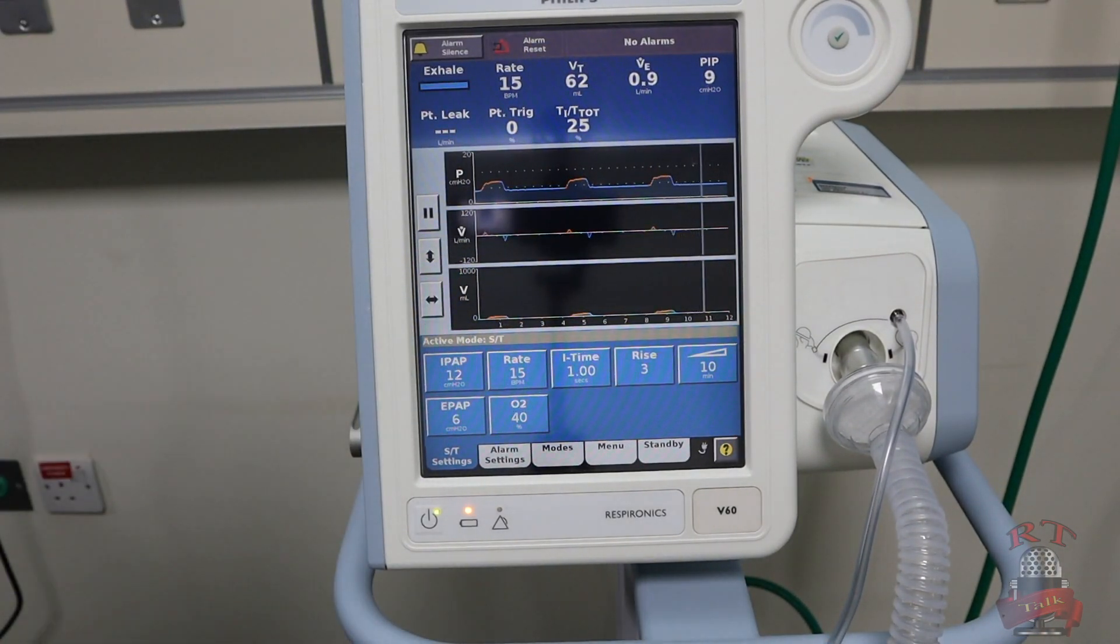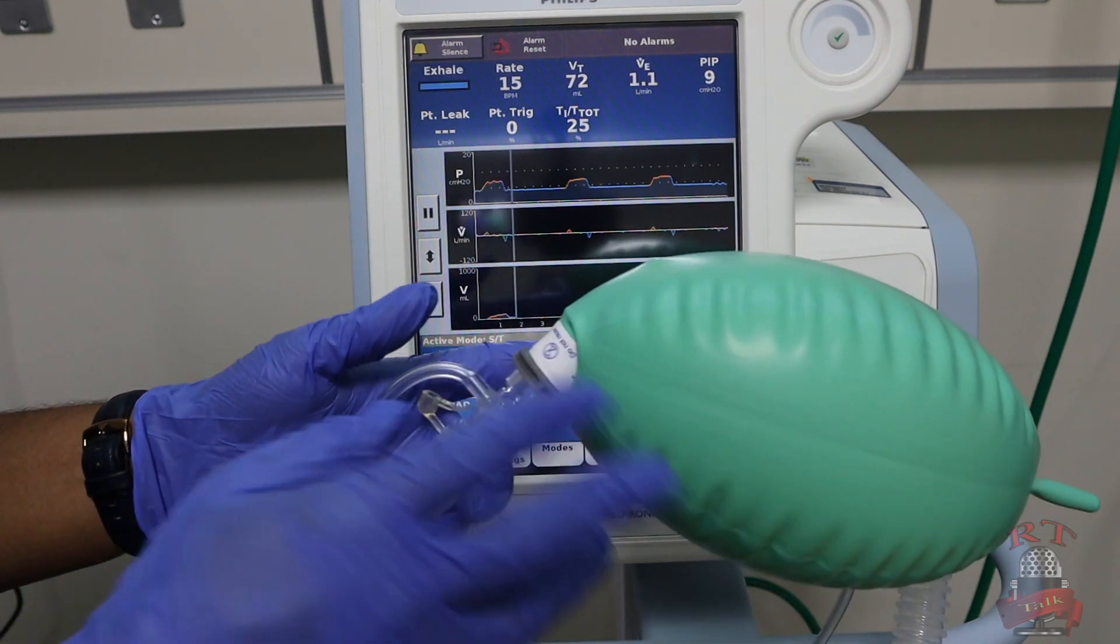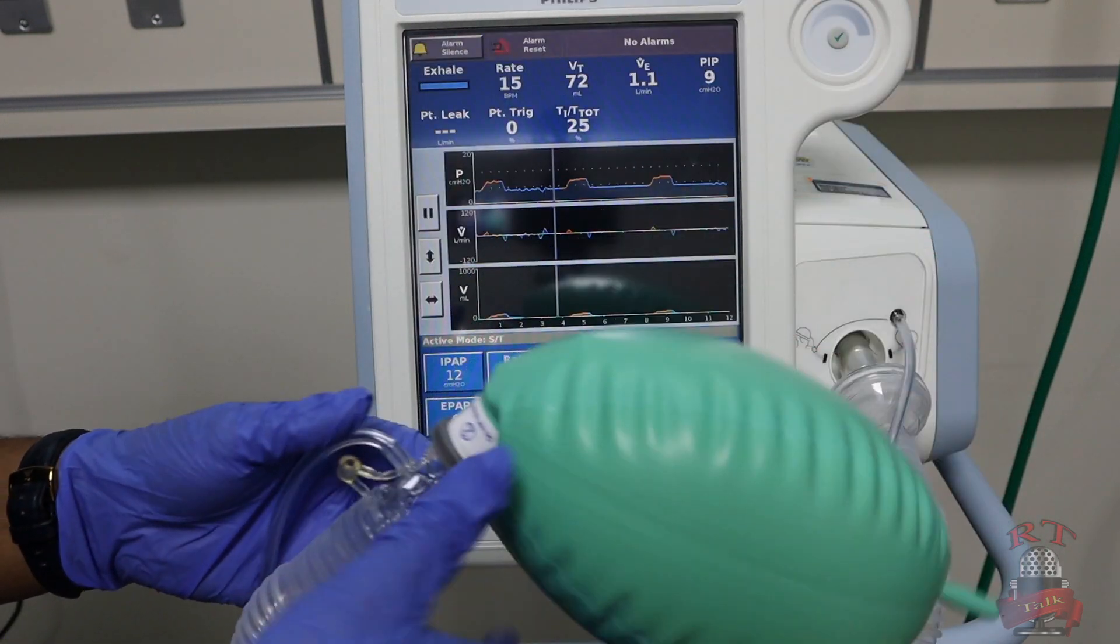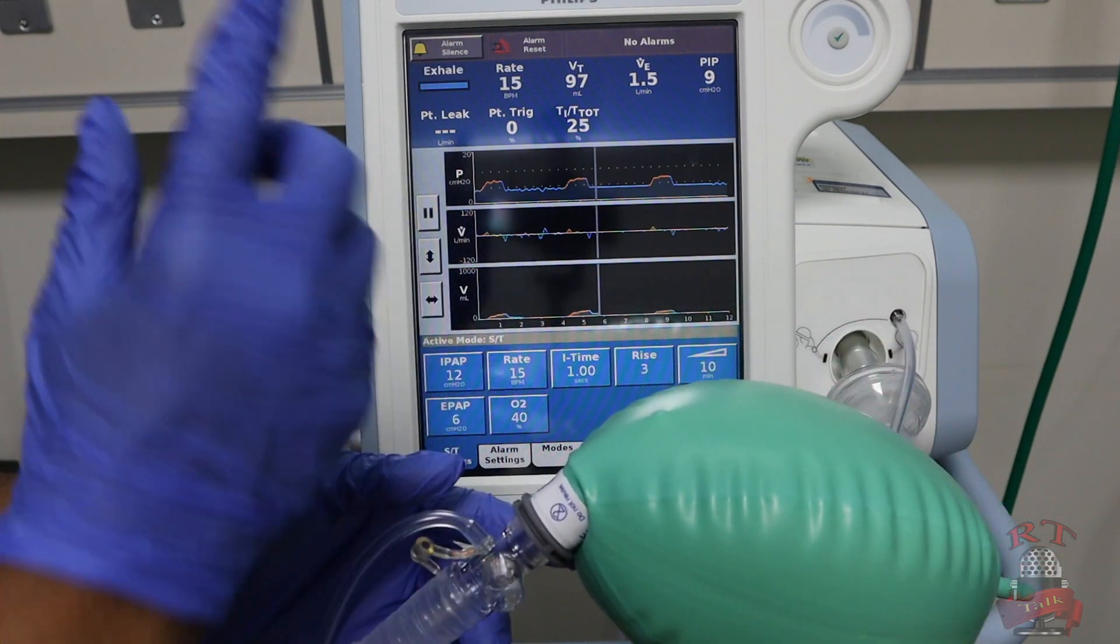But here I put it in a test lung just to show you. You will put the interface here and connect it to the patient.